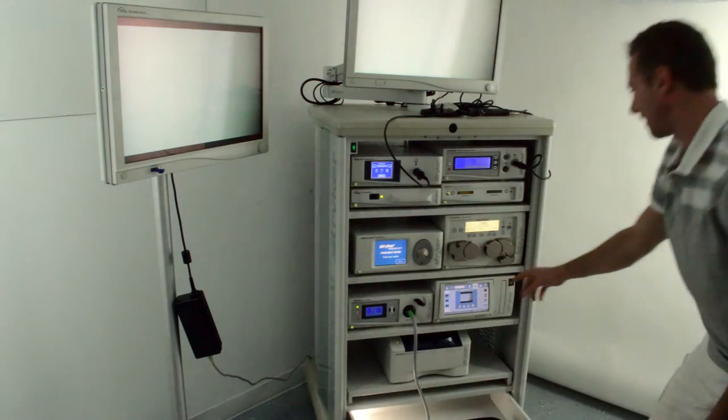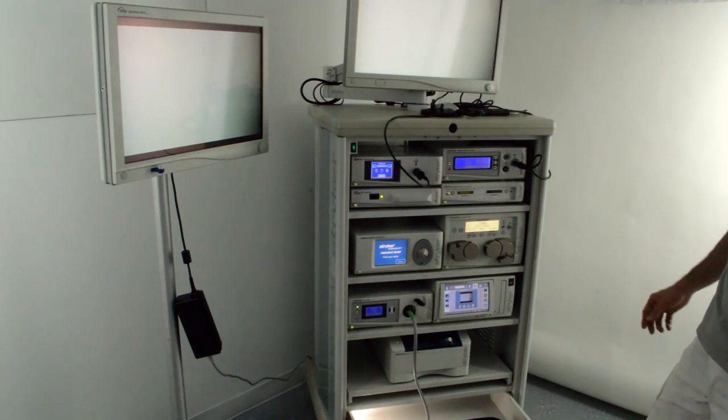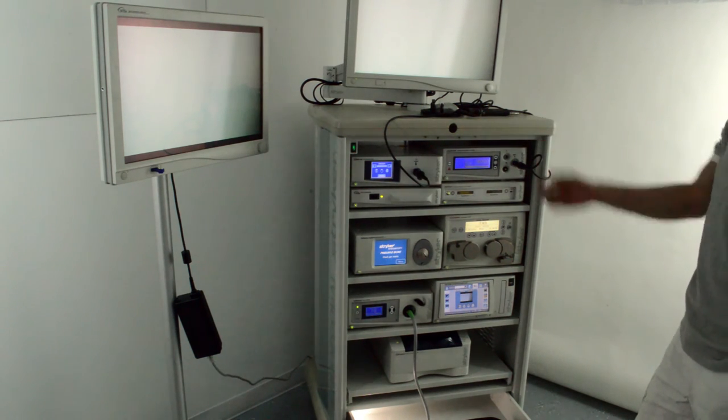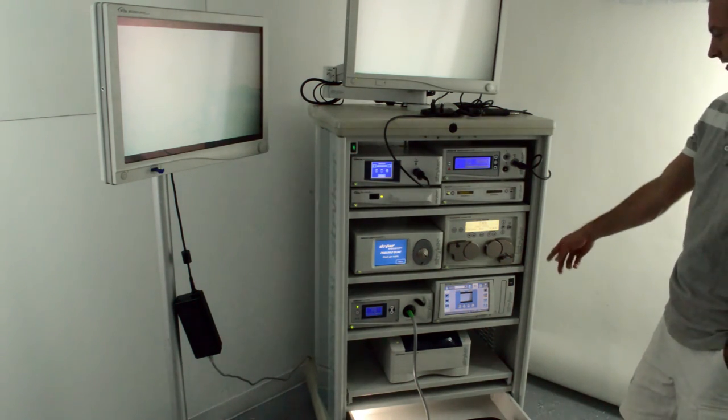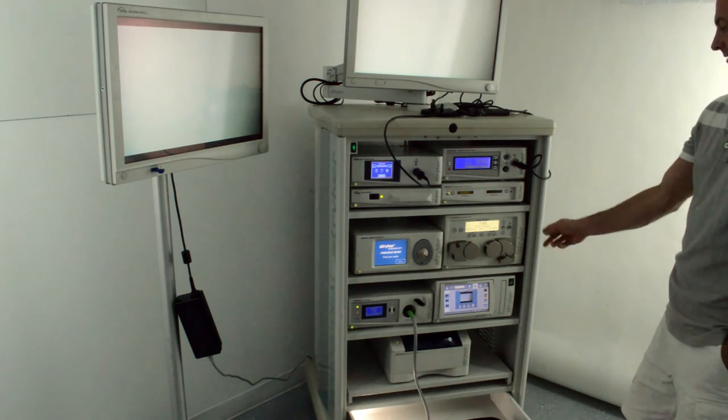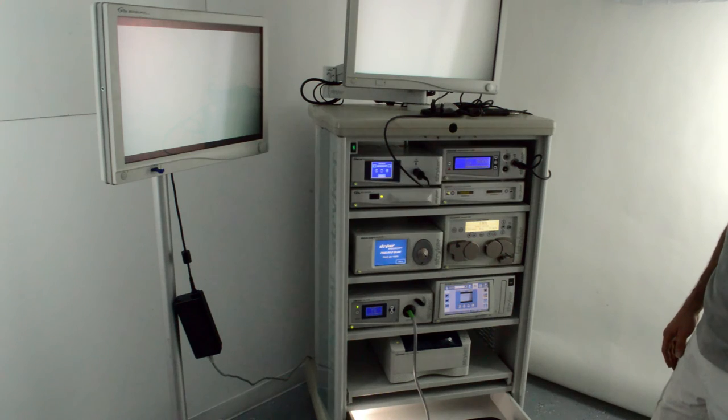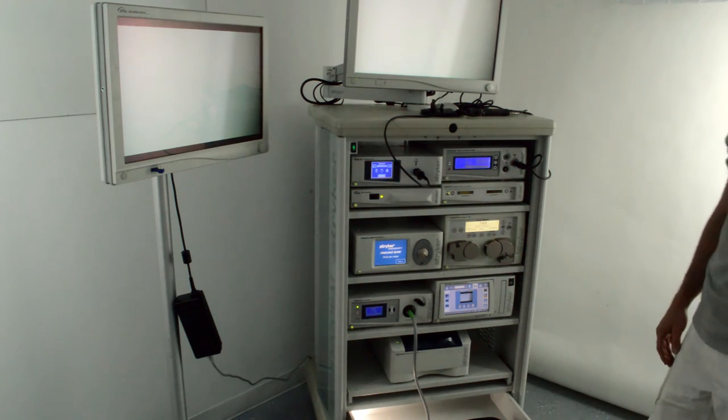Next to it is the SDC Ultra. It records still images and videos of the procedure occurring and can transmit the images to the printer where you could print them out. Other than that, this is the Stryker 1288 camera system.